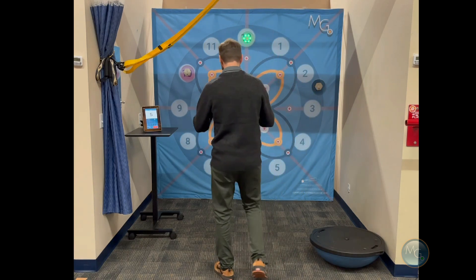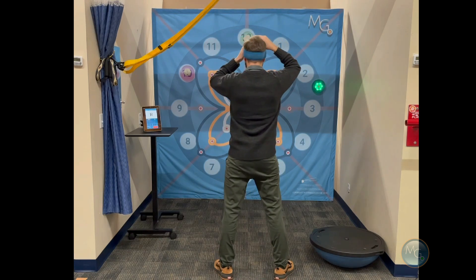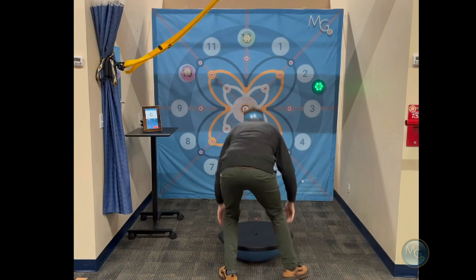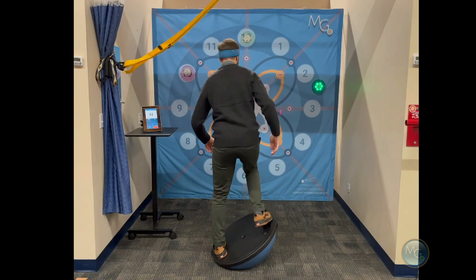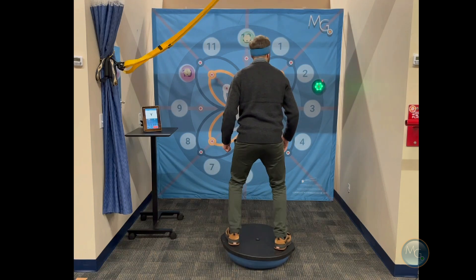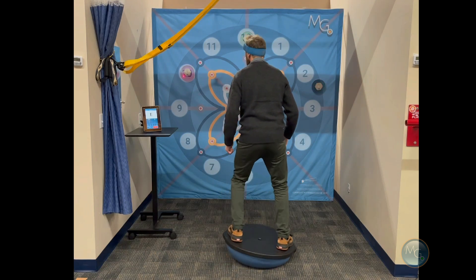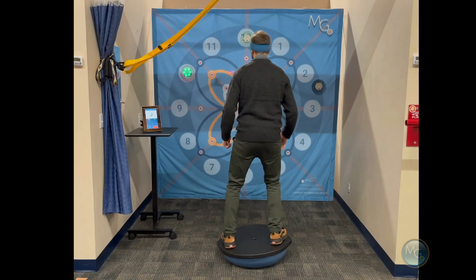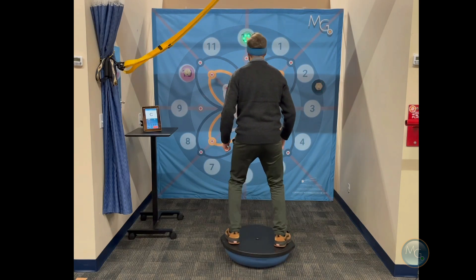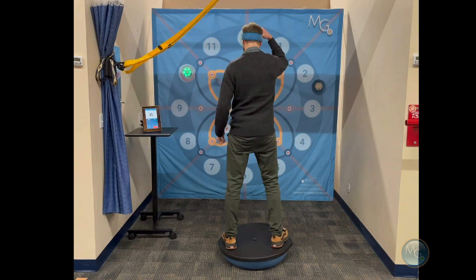So if I'm standing here, I put on the interactive laser and turn it on. You can also stand on something unstable. And then I can call out: L, Y, H, Q, E, N, J, B, S, C, I, H — and so forth.